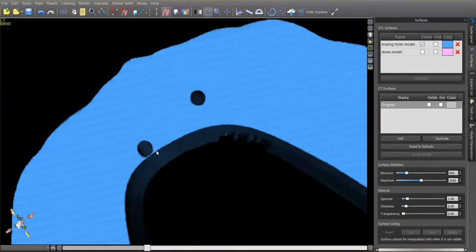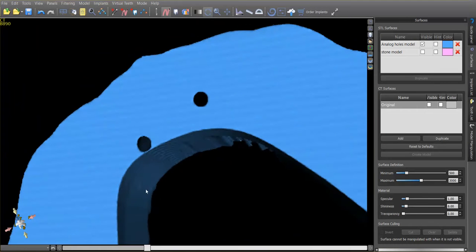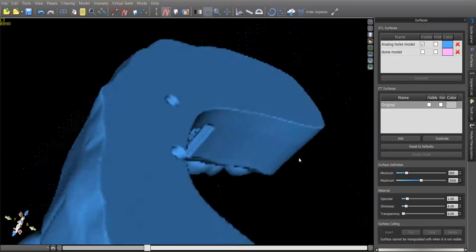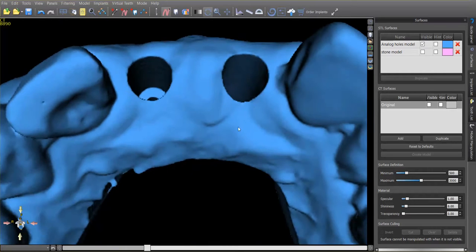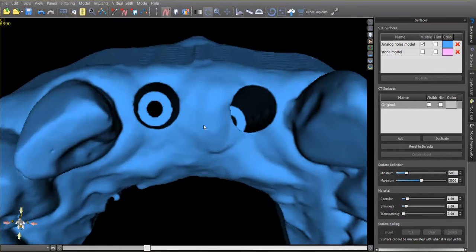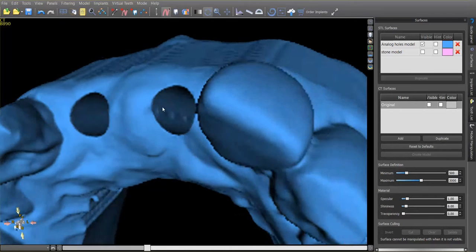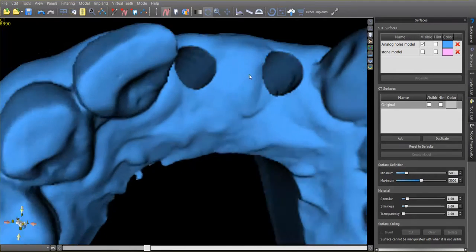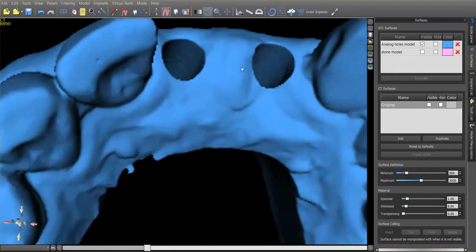You'll also notice we've got a smaller hole from the underside — you could take any thin object and push this out. What's so great about this is that now we could actually 3D print this model, drop the analogs in, and then create restorations, temporary restorations on this. You could even create the final abutments. I wouldn't create the final crown probably on this because there could be a little error in contacts or some small details like that. But you could certainly create the final abutment and then be able to make your temporaries at the time of surgery or even have the temporaries fabricated ahead of time.